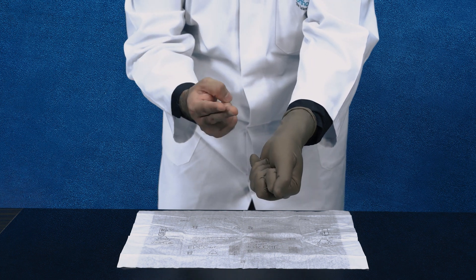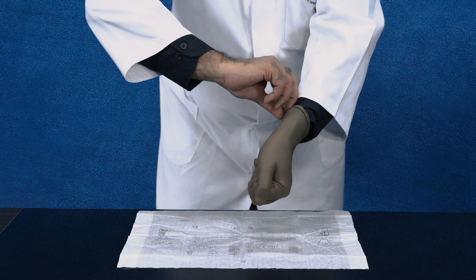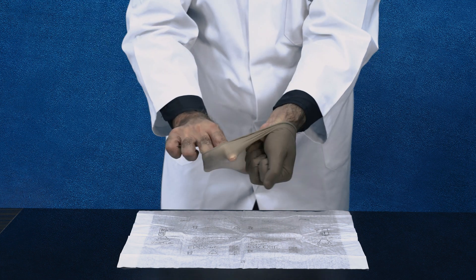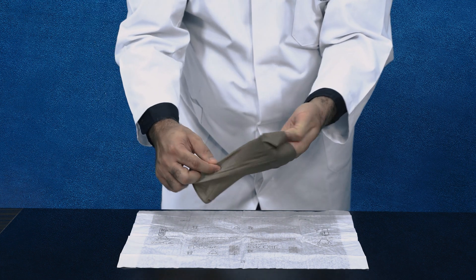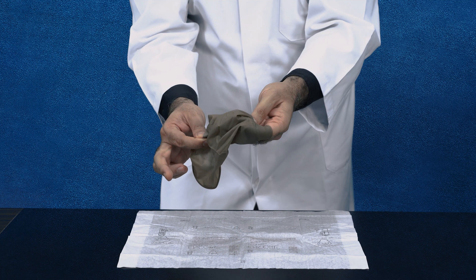The gloves will go on the left side. These two fingers on the right will touch the inner part of the gloves and then will roll it on the other side. So you are holding the inner side. You are done with the surgery. You have taken off your gloves.